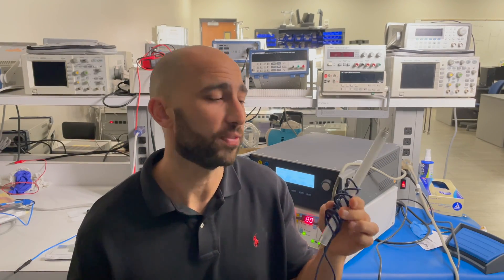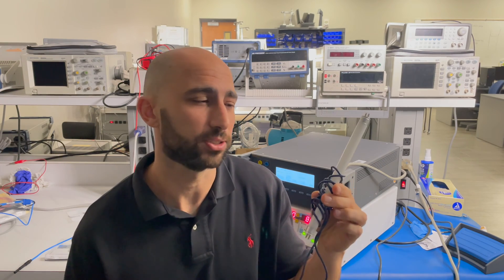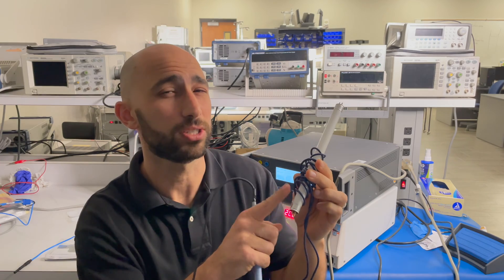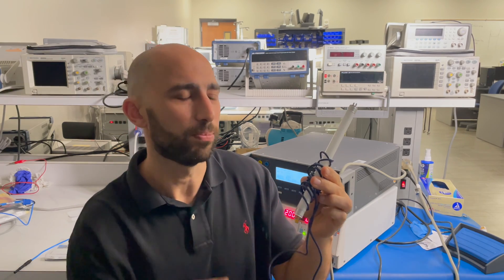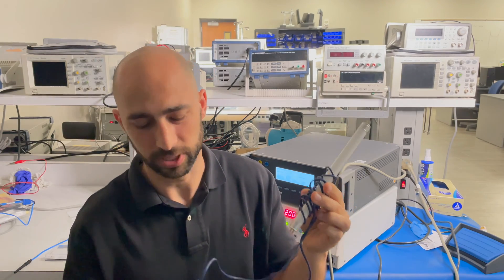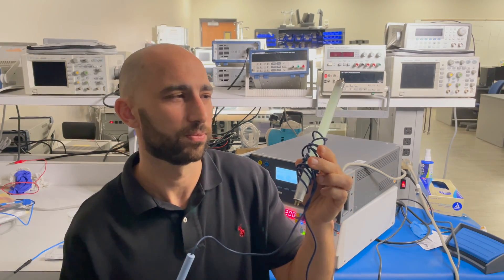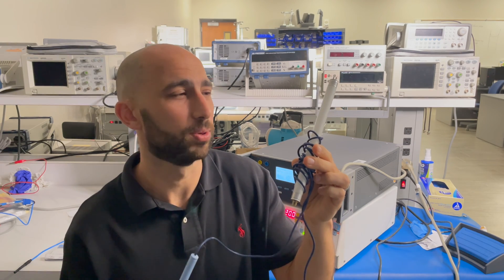So when you're dealing with high frequency AC, you have to think about both induction and capacitive effects. Right here I have a fluorescent light bulb that's been wrapped around by my ESU cable. What I'm going to do is hit the COAG. You can see that that fluorescent light bulb lights up.